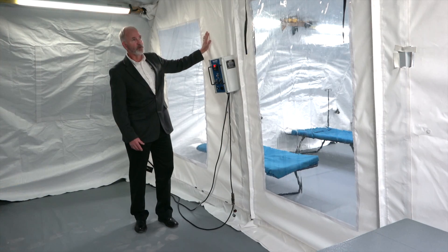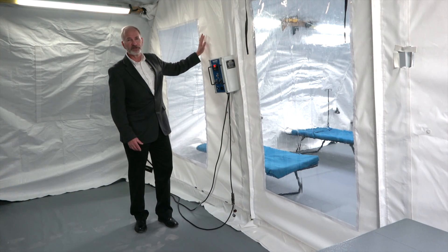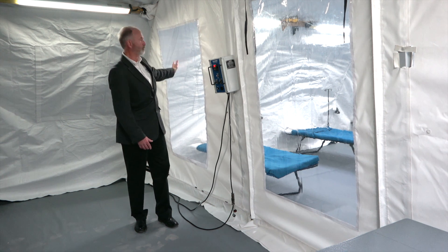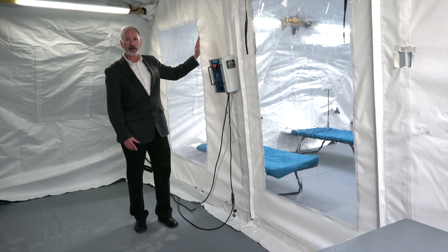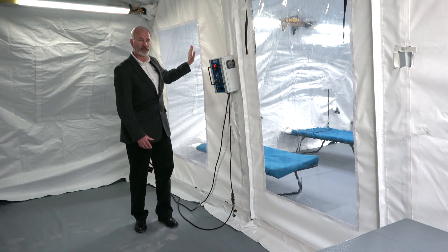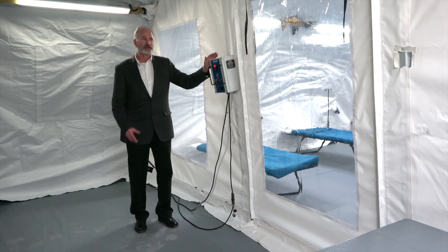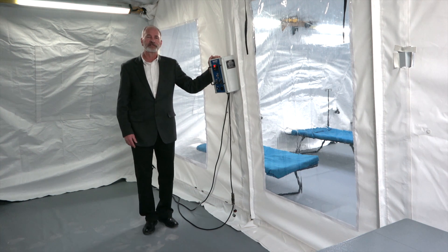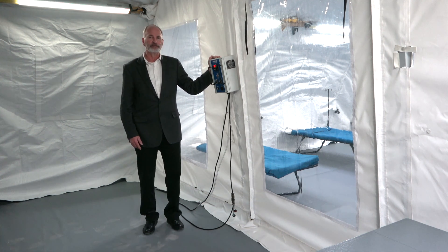Another major component — this is the isolation partition, and you can see the clear panels so that you have good visibility to the patients that are inside the isolation area.